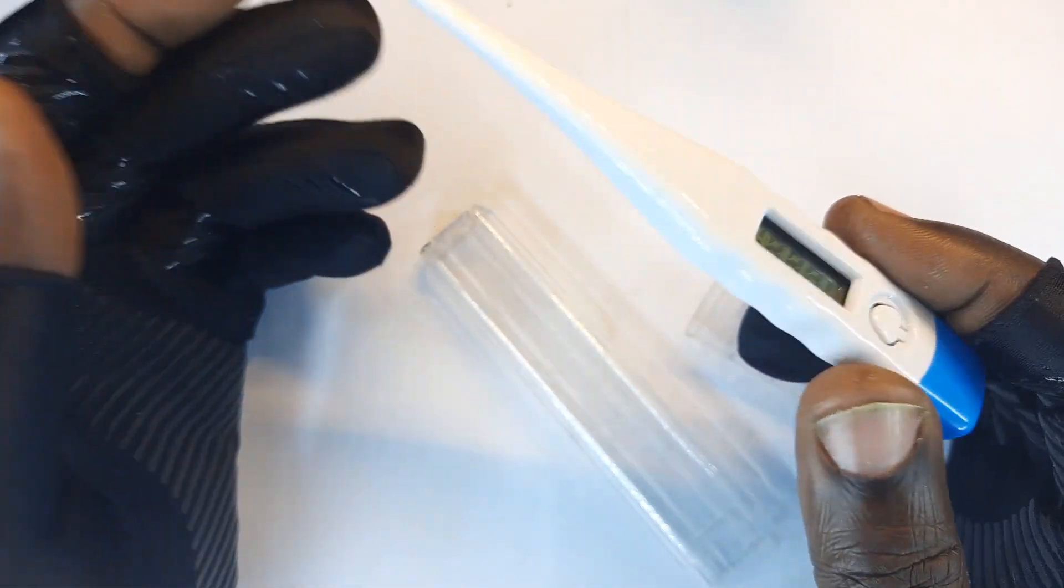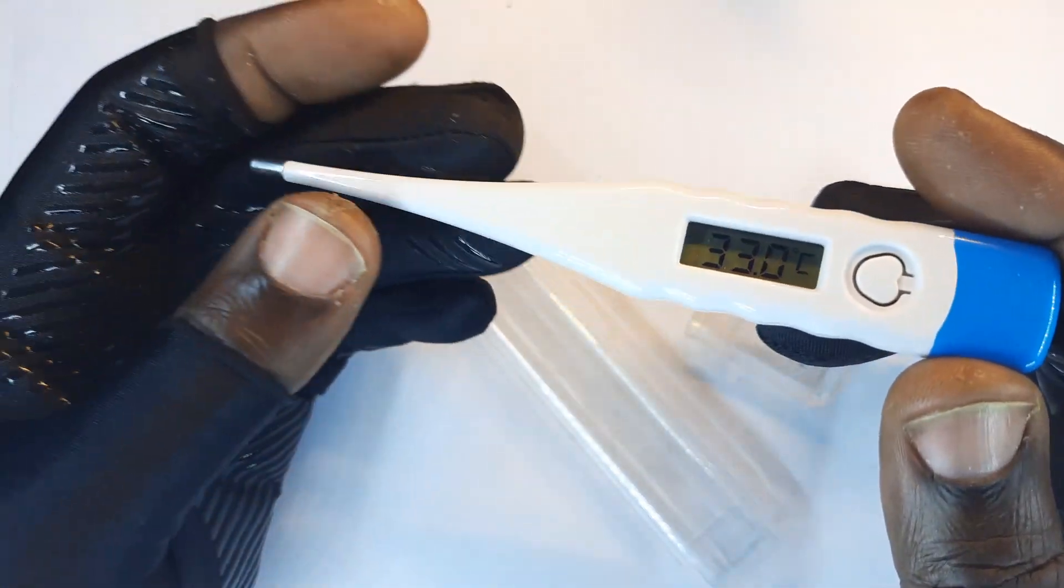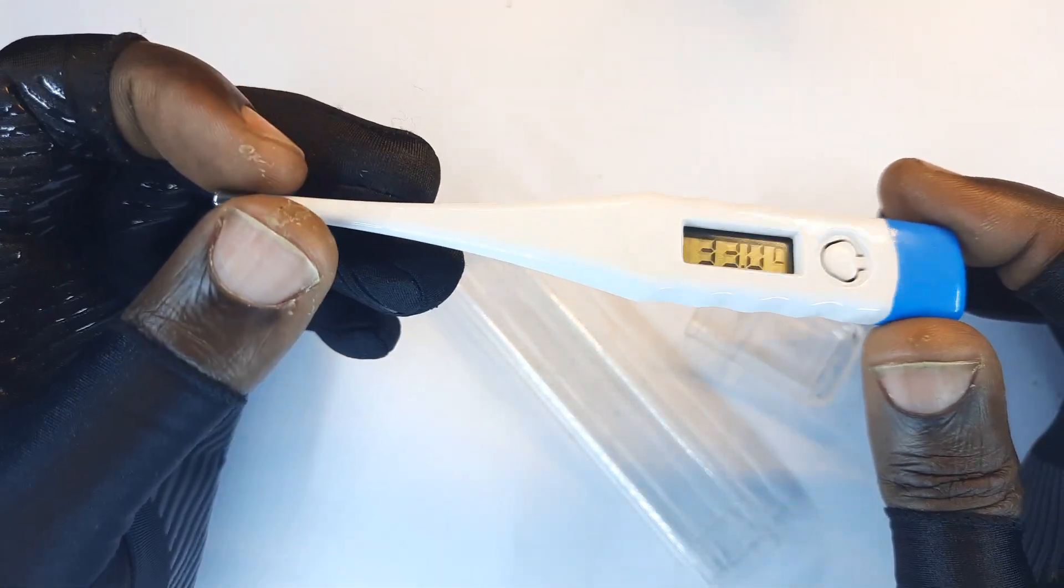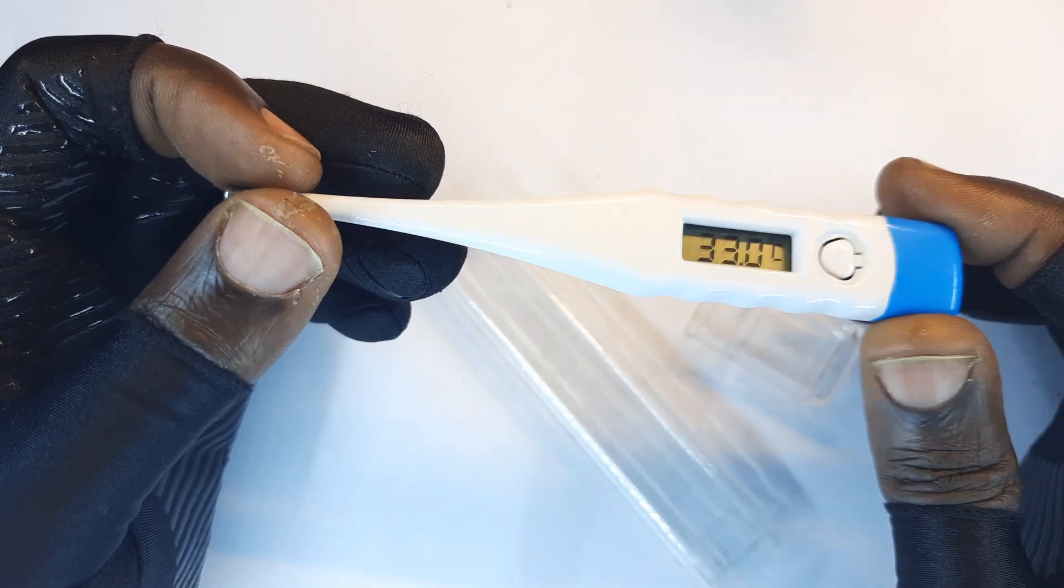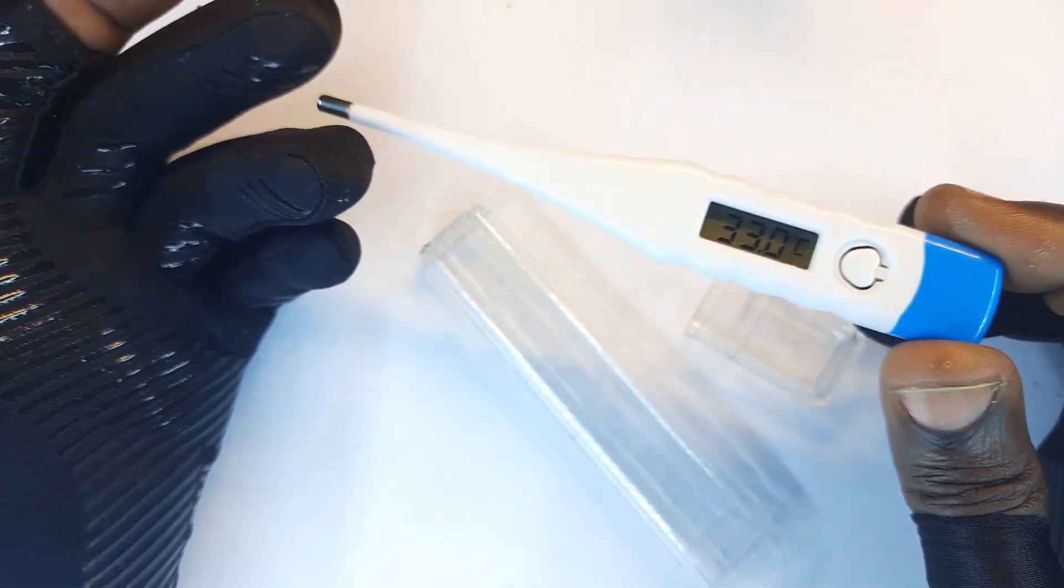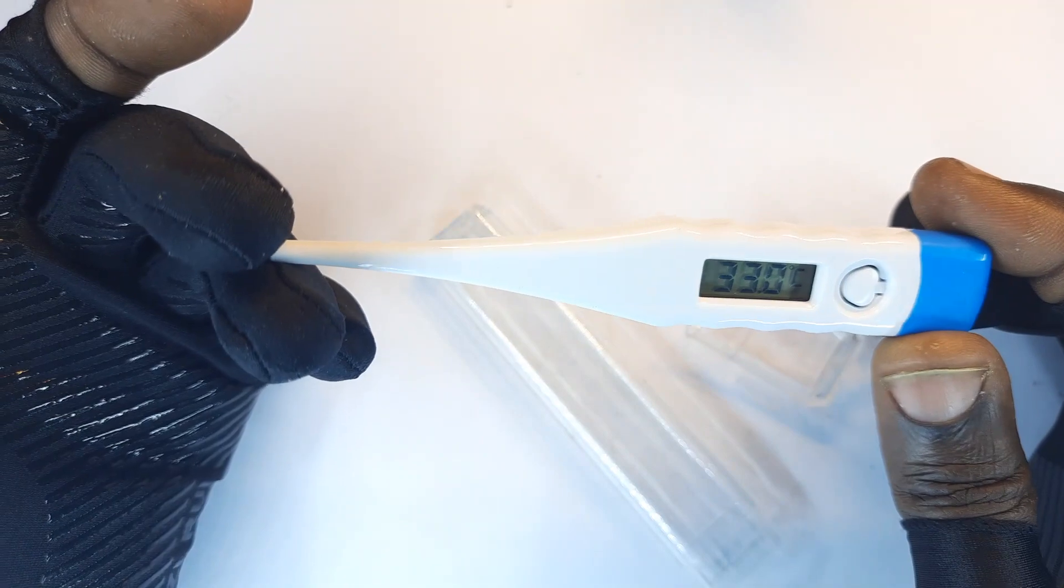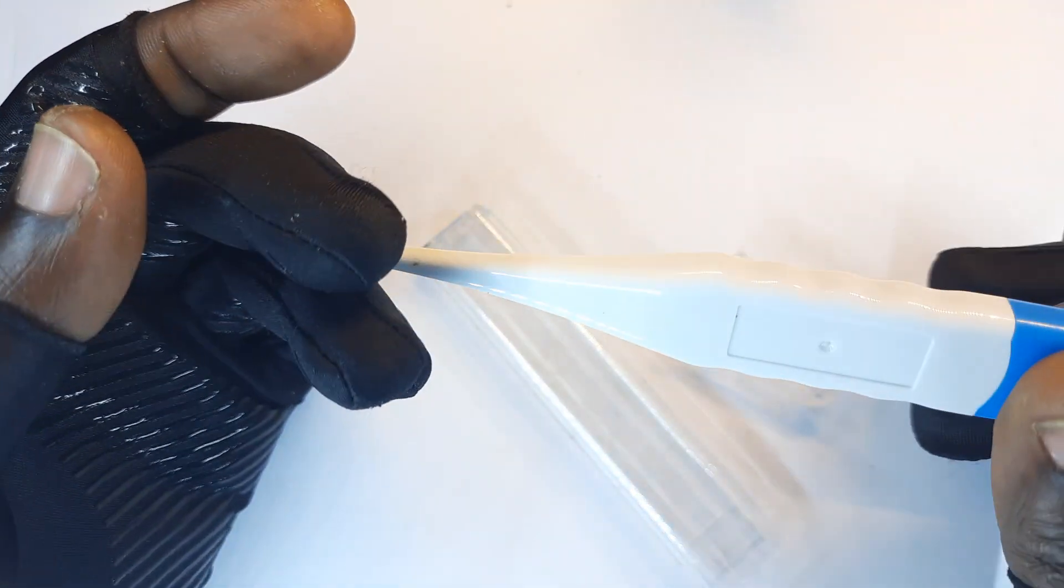But I know when you're measuring body temperature, this definitely would be in places where the heat is not lost immediately. For instance, armpits and other places that are not worth mentioning on this channel.